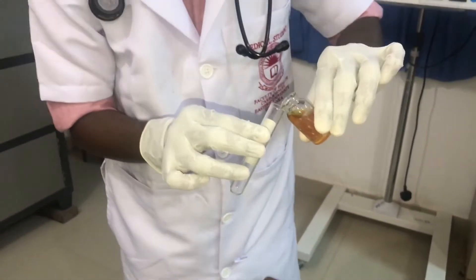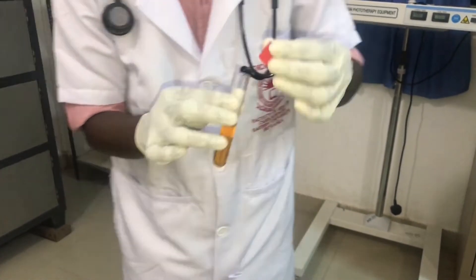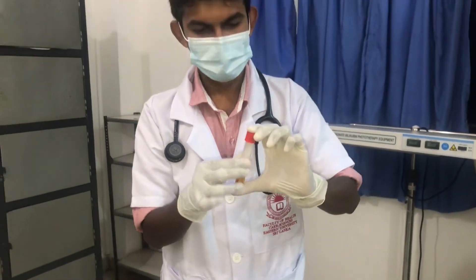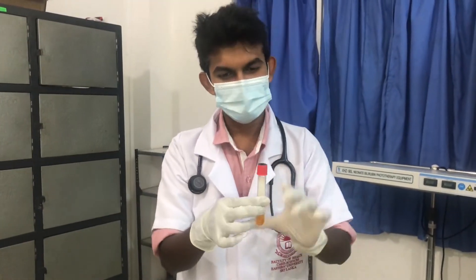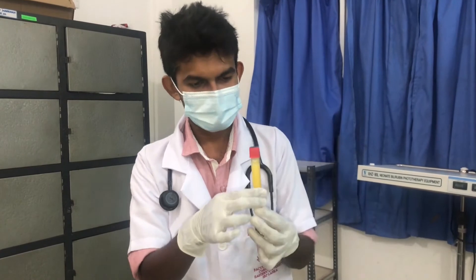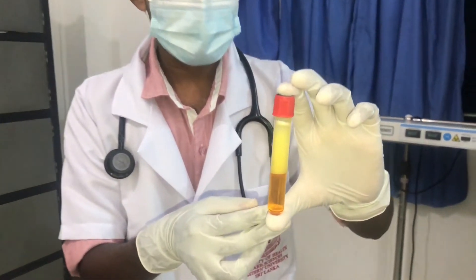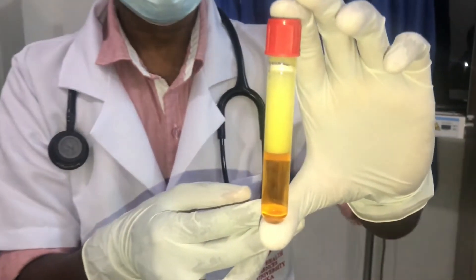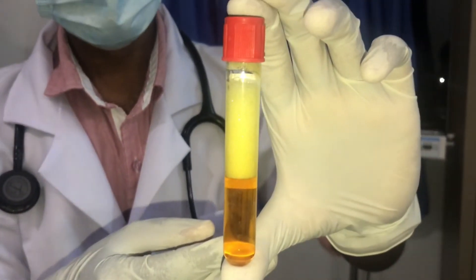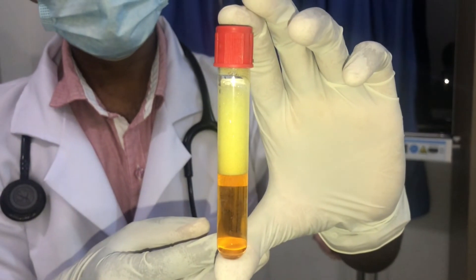Get the urine in the glass. Shake well. You can see the formation of foam. So this test is positive.